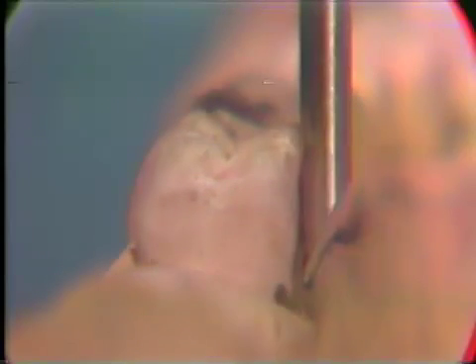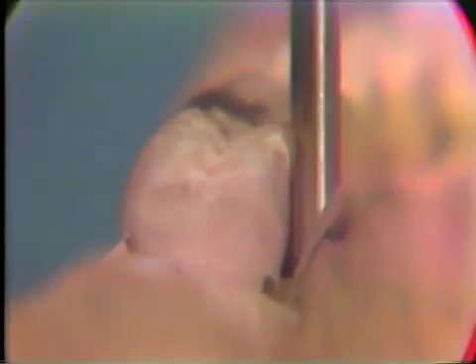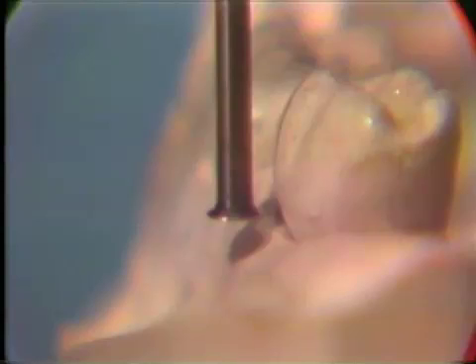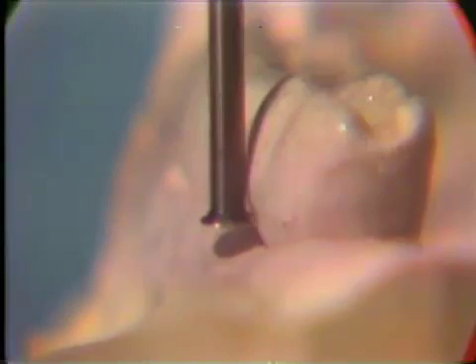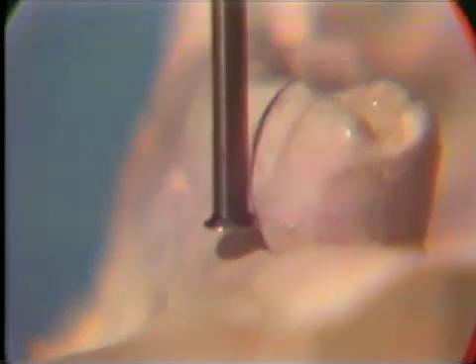First, it must be parallel to any existing or prepared guide planes, such as the lingual of the molar. Next, the correct amount of retention must be determined on the existing or prepared teeth, so the crown you make will be in harmony with them.